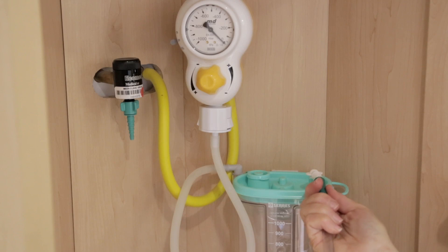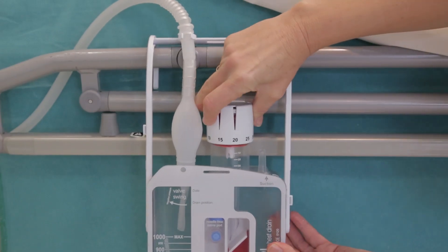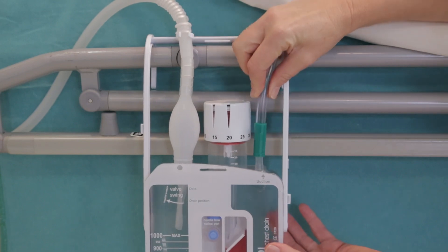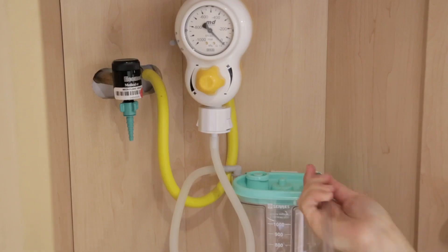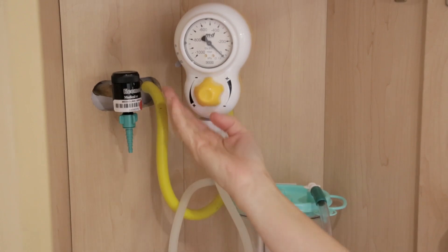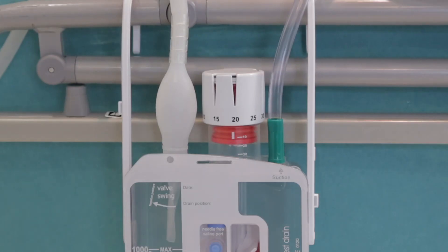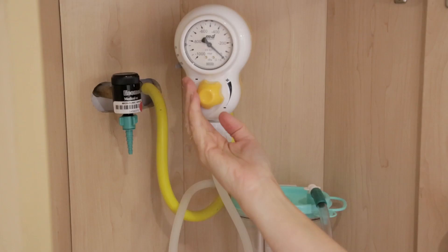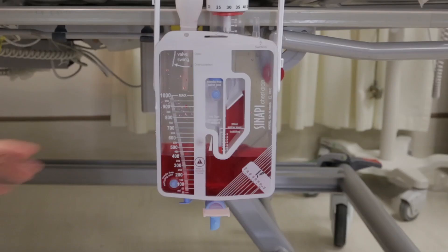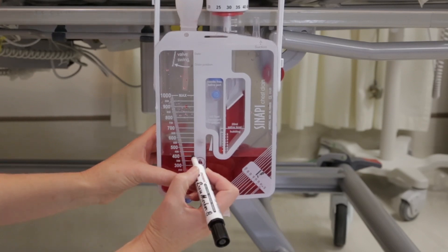Use a Synapi chest drain for gravity drainage or active suction. To initiate active suction, set the white suction knob to the required value. Connect the tubing from the vacuum source to the suction port. Slowly increase the wall suction from zero until the red bellows reaches the set value.